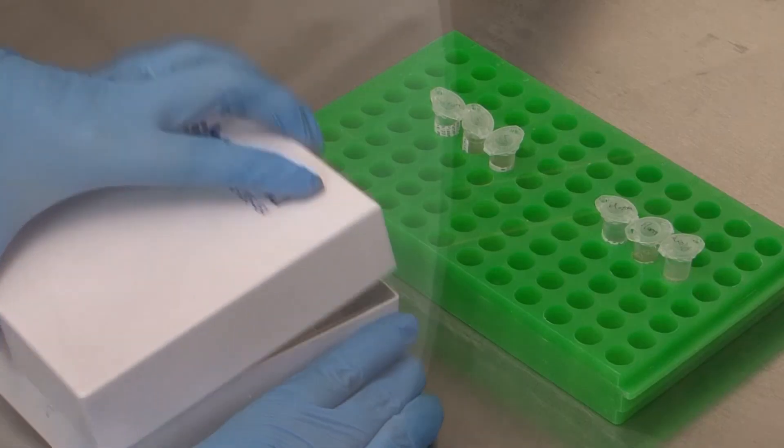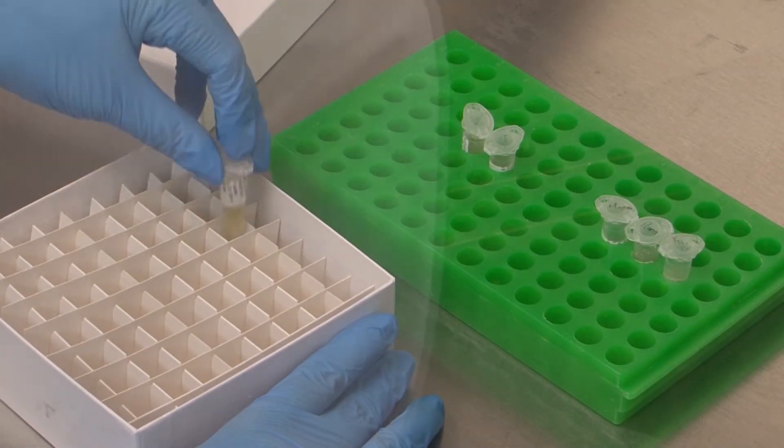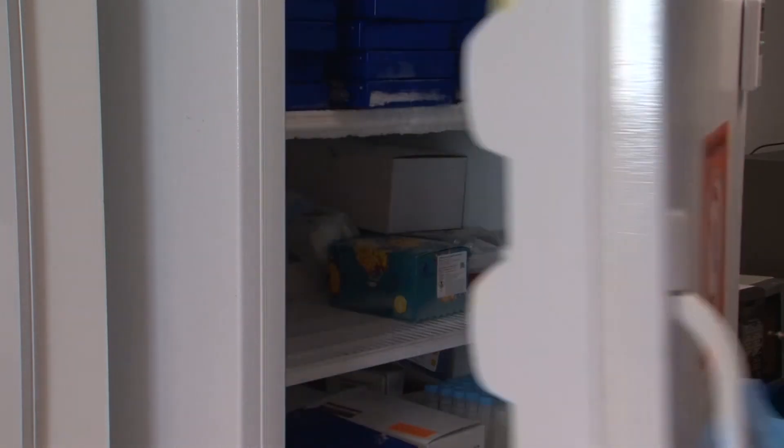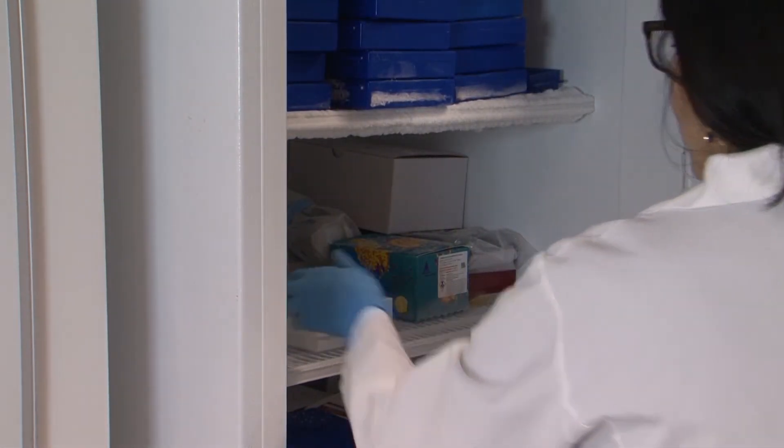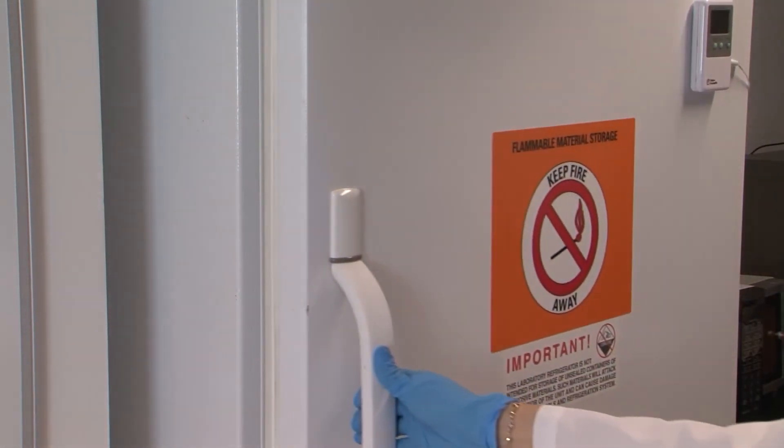The tubes should then be placed into a tube rack for freezing in a standard laboratory freezer at minus 20 degrees Celsius until they are shipped to the perinatology research branch.